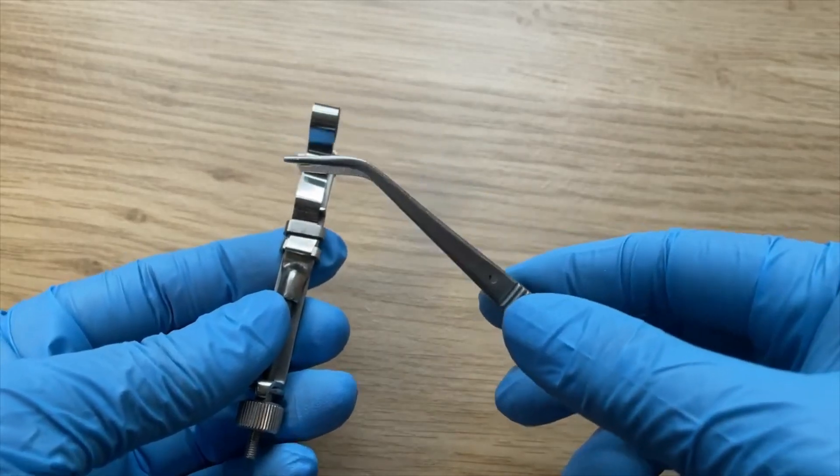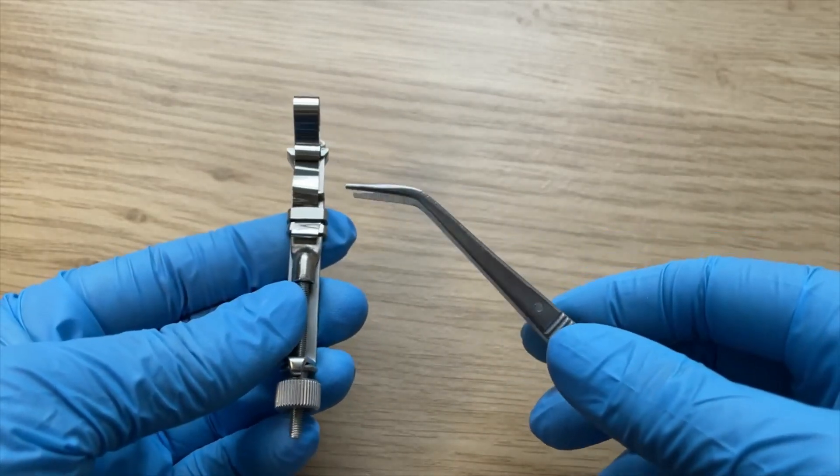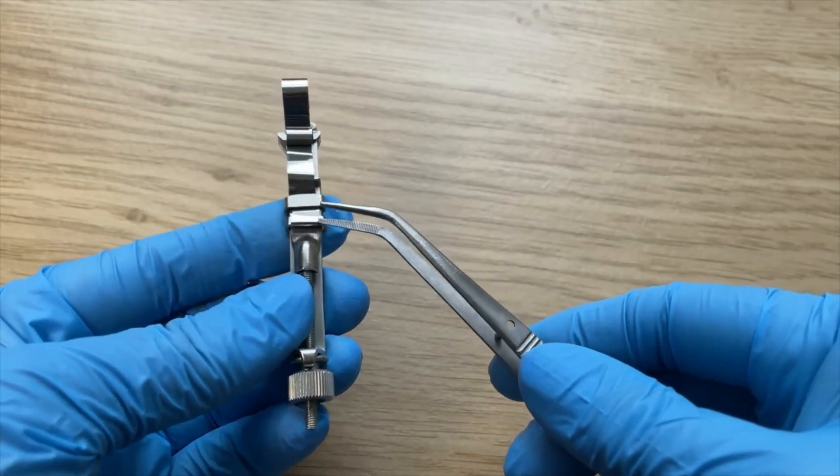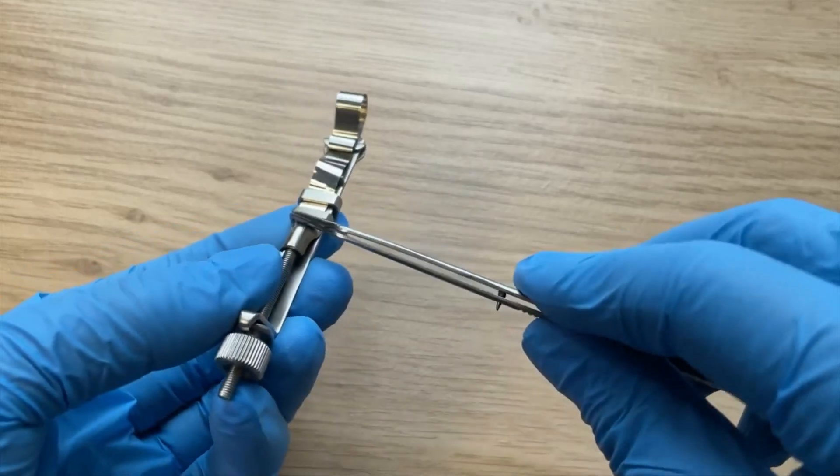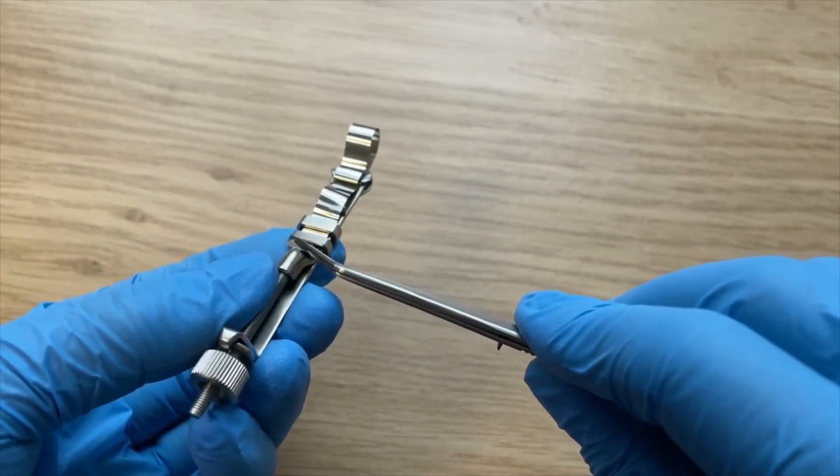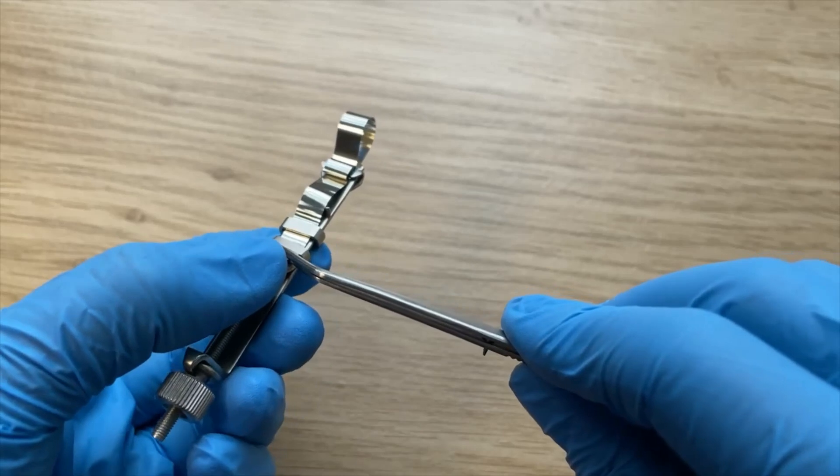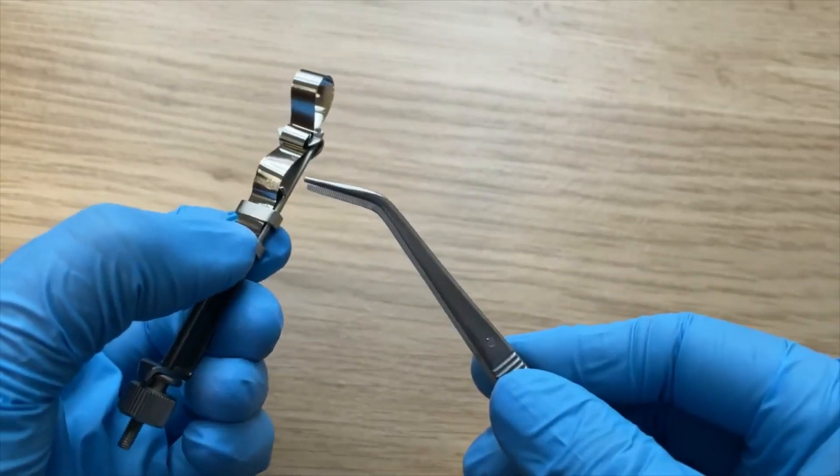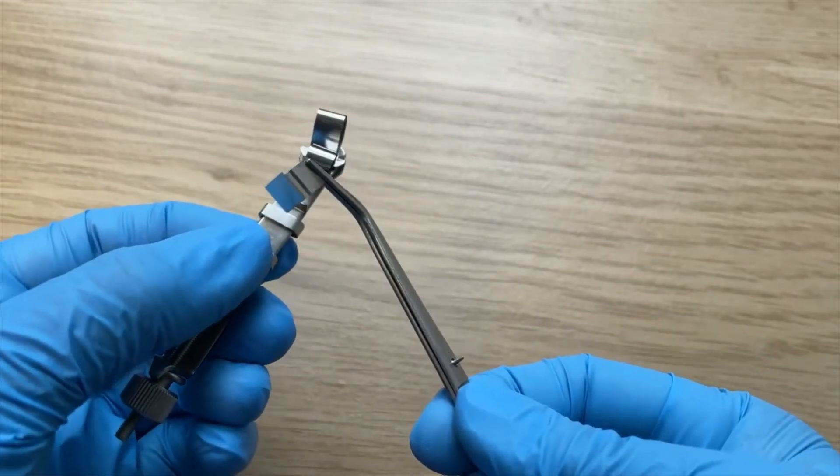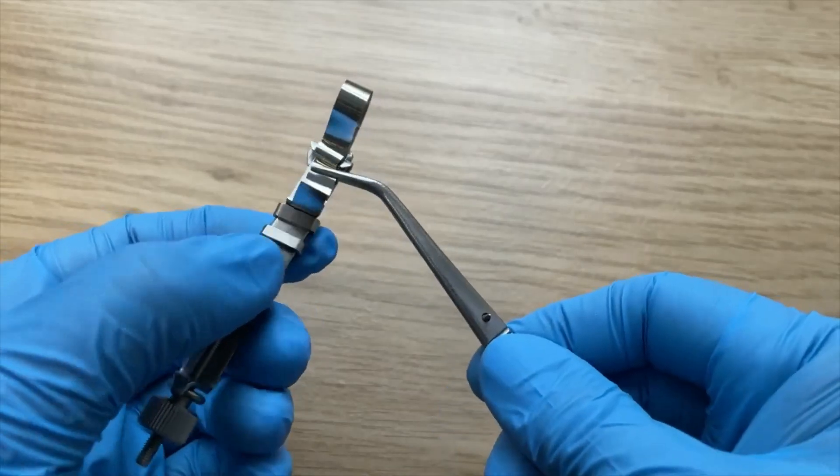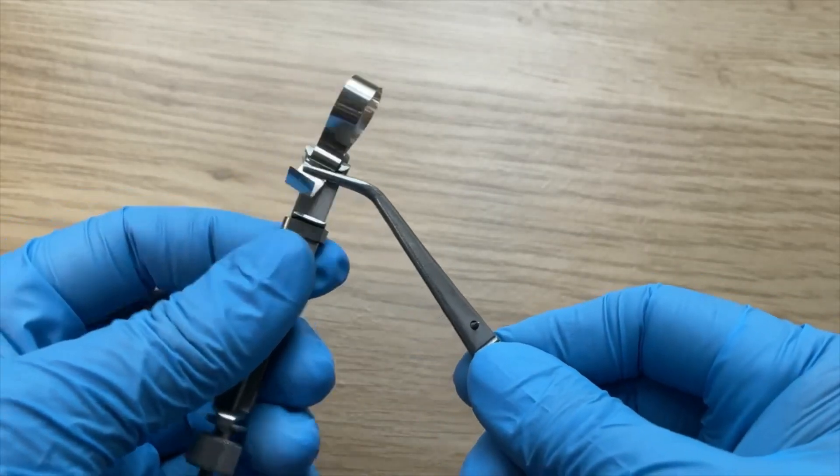Just insert the tip of your tweezer on the end part of the band, and come back here. Pull it up, try and push it up. There you go.